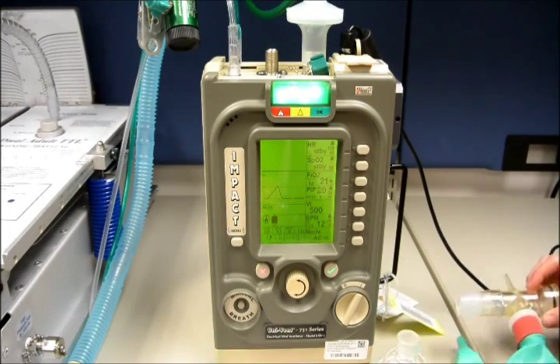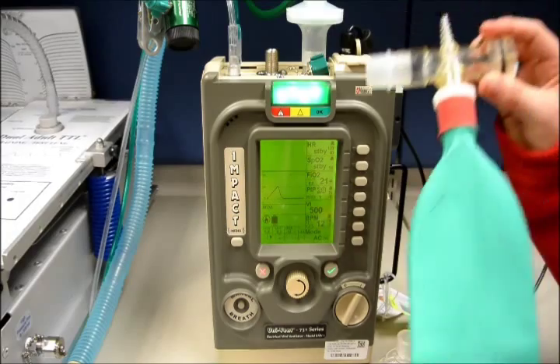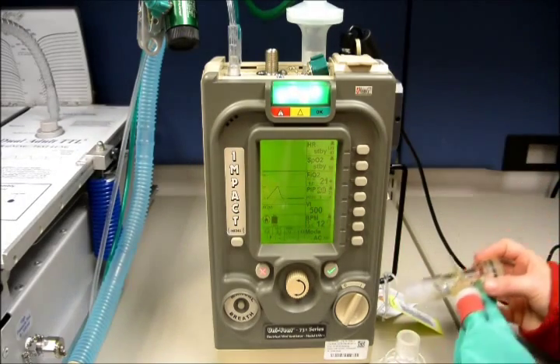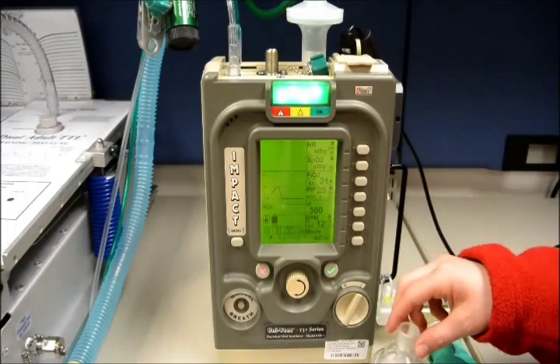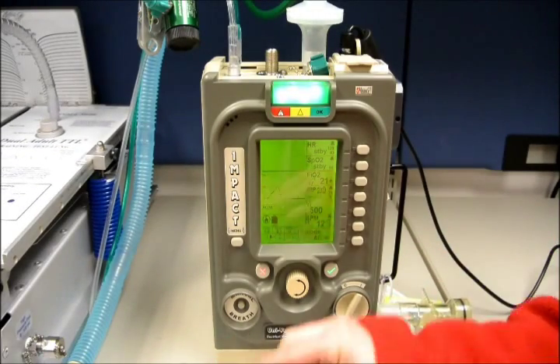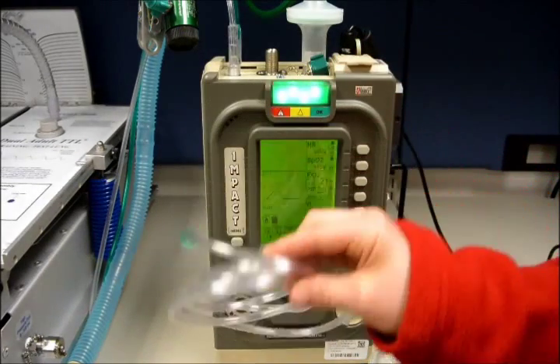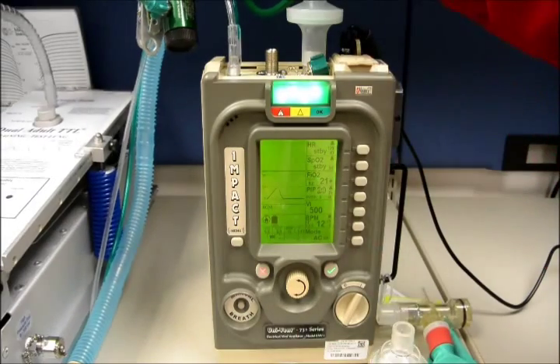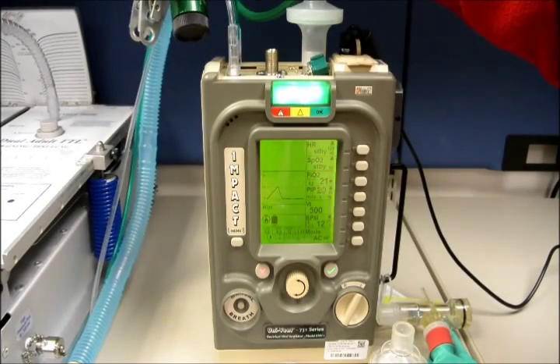The items I will need for this are O2 reservoir, vent filter, and O2 tubing, and then a flow meter.